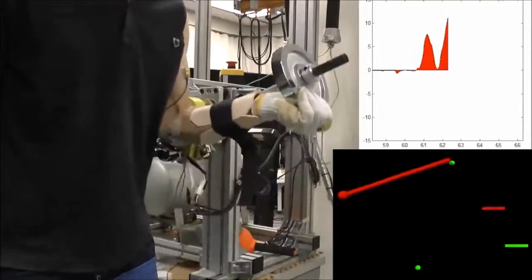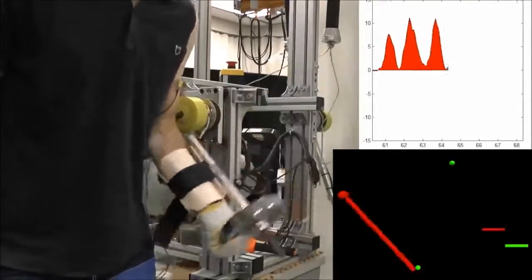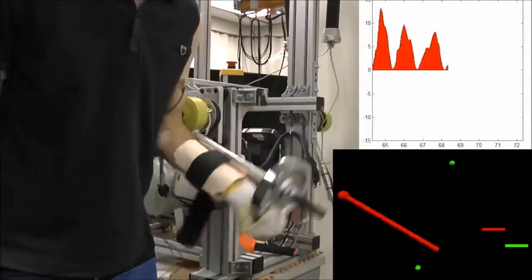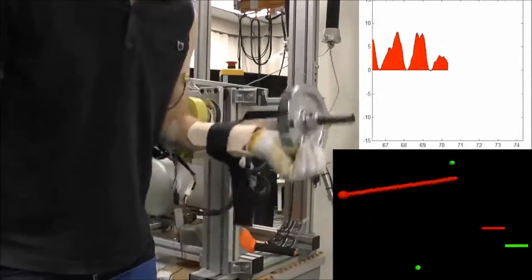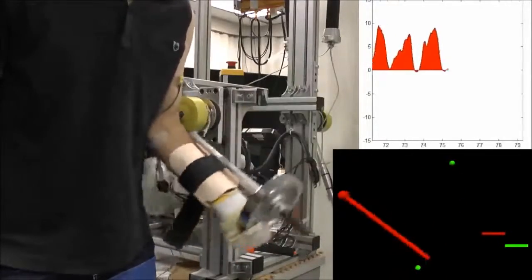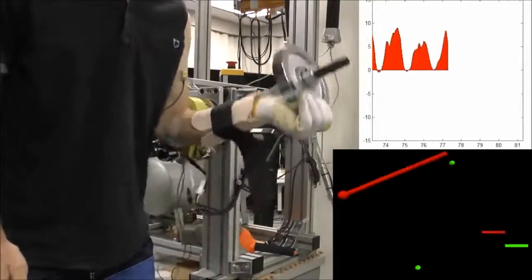In the second and third stage, the subject was instructed to extend the motion of the hand, first downwards and then upwards, to meet the new reference motion. Each stage had a different target frequency.